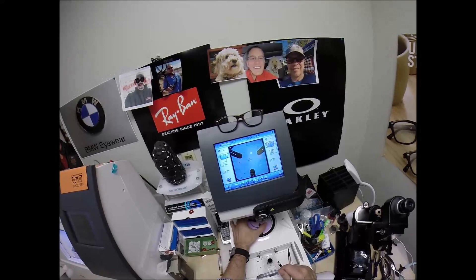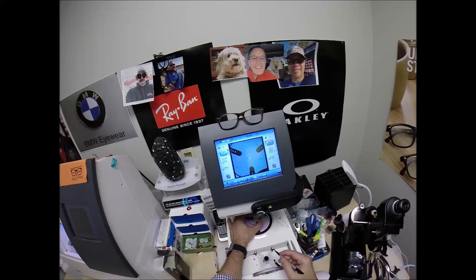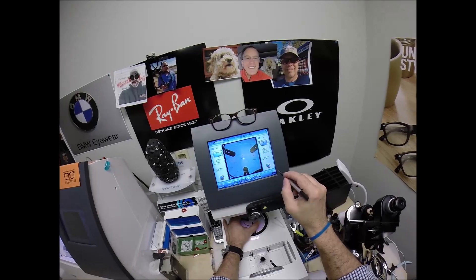Pull the paper away, make the black side sticky, line up the same pupillary distance, same optical center height naturally. The PD can be different, but the seg height for the bifocal will be the same on both eyes. Make sure the lens is large enough, and it is. And, let's get everything lined up in there just perfectly. Hit that button. The arm's going to come down and place a block onto the left lens.